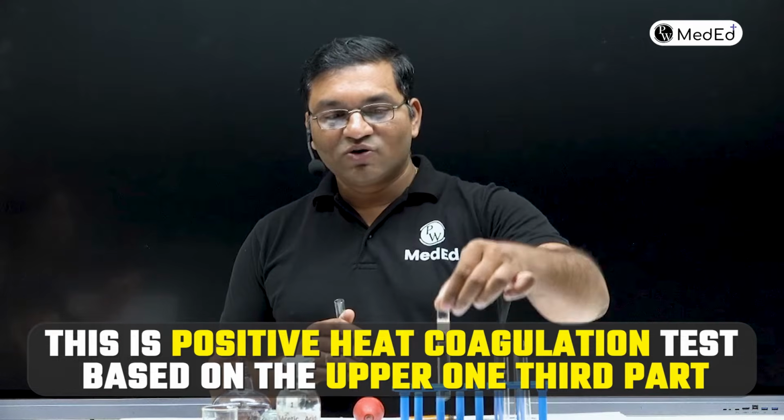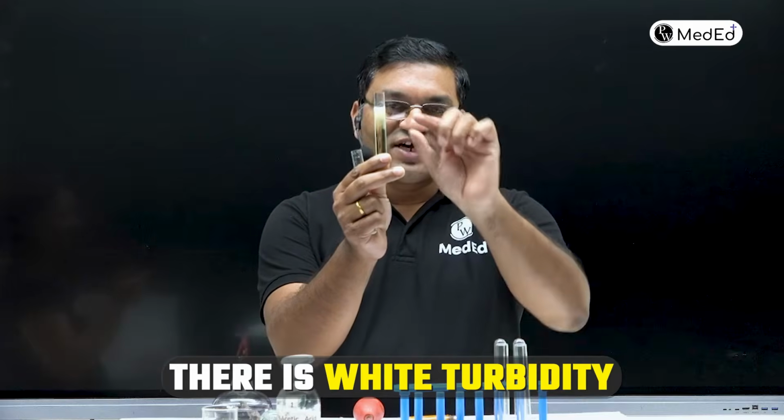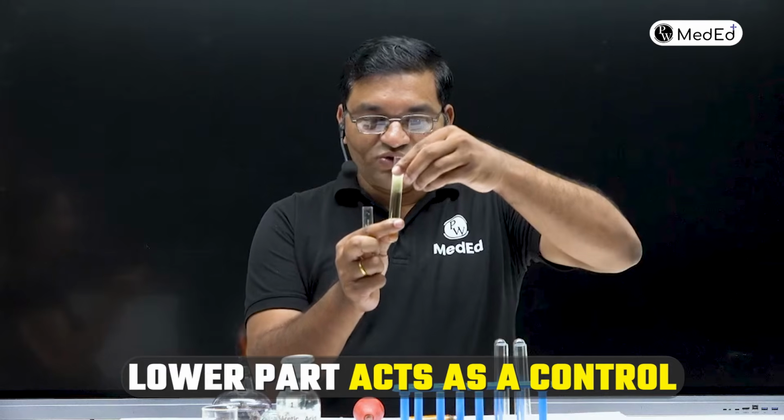See, this is positive heat coagulation test. Observe the upper 1/3 part. There is white turbidity. Okay, and lower part acts as a control. So we'll demonstrate that.